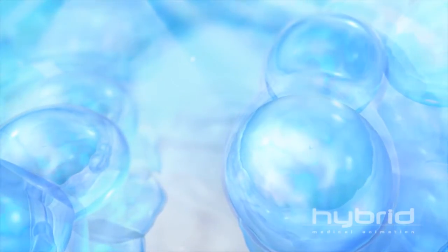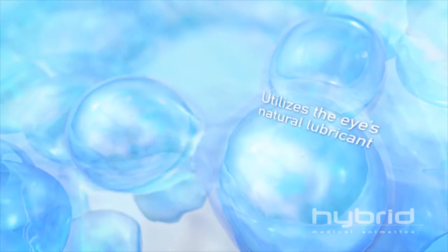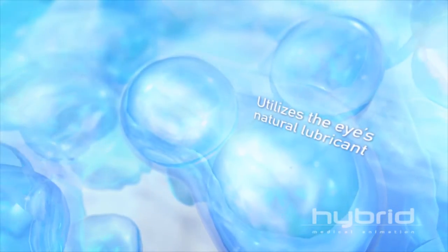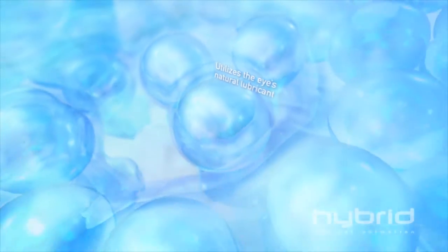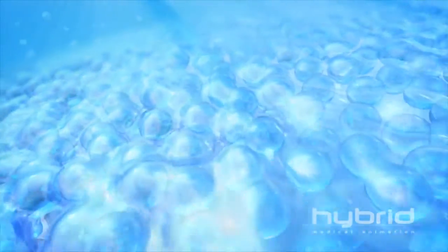And to help hydrate lenses, BioTrue utilizes Hyaluronan, the eye's natural lubricant. BioTrue forms a free-flowing network on the lens surface, drawing in water to envelop lenses in a hydrating cushion.